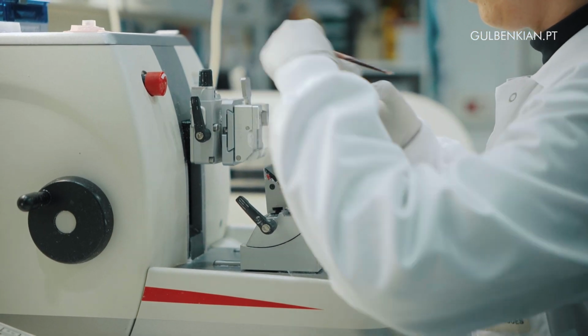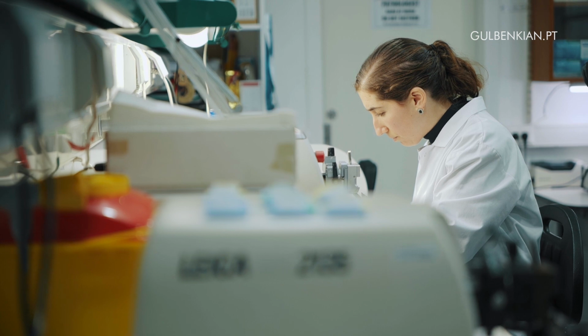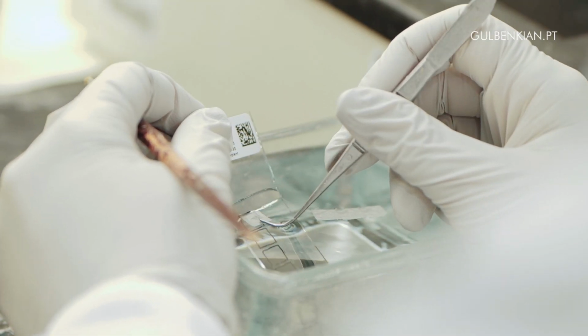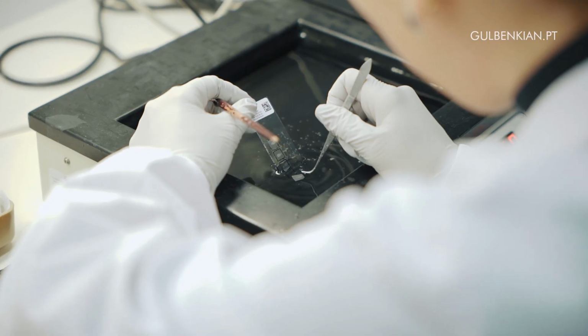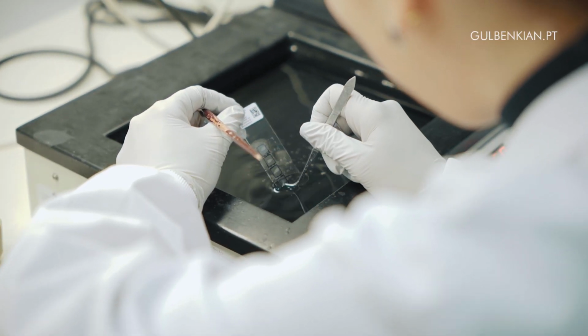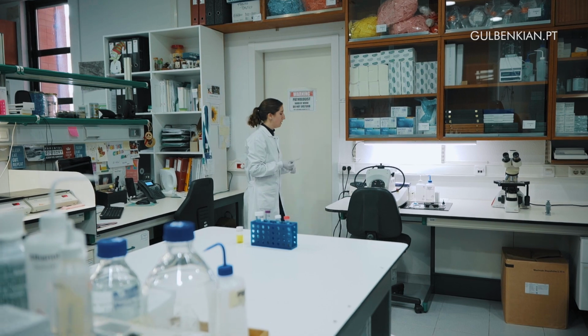This technology allows us to go back to samples that are preserved in our biobanks. For instance, we can go to samples from tumors in patients and see what the tumors were expressing, and this might indicate how or why they responded differently to chemotherapy and radiotherapy, and how the outcome was different even though they had the same tumor in the same stage.